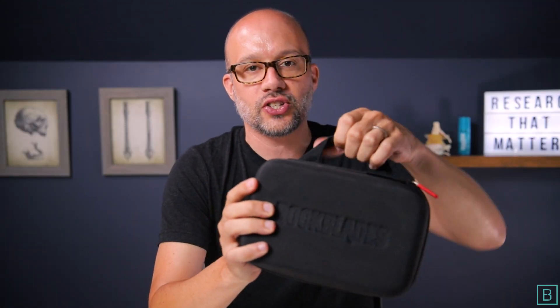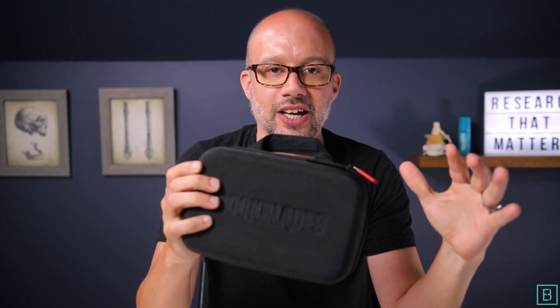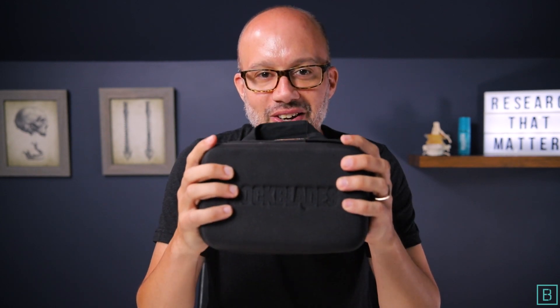As we kick things off, you can see right here Mohawk comes in an awesome carrying case. This can help you tremendously if you are on and off the field, in and out of different gyms, different boxes, different practices. This carrying case helps you keep everything in one spot and it makes travel super convenient.